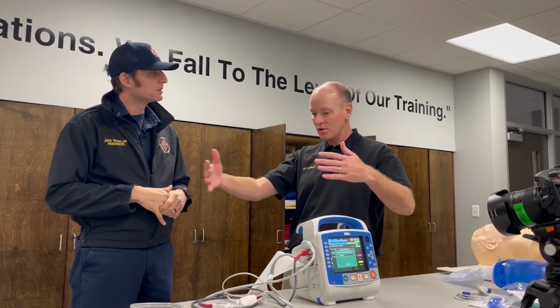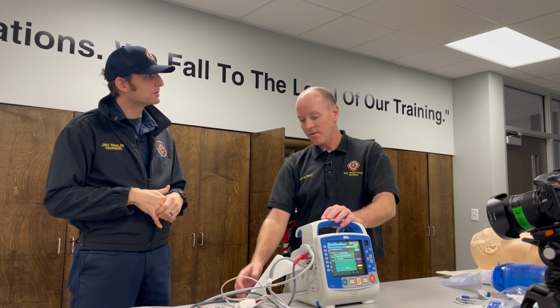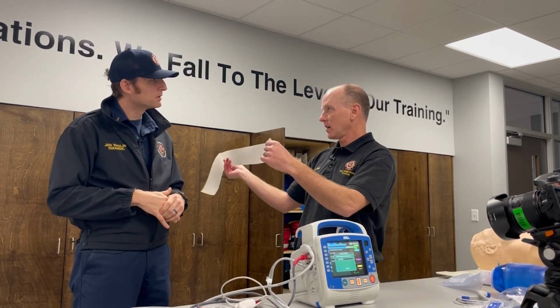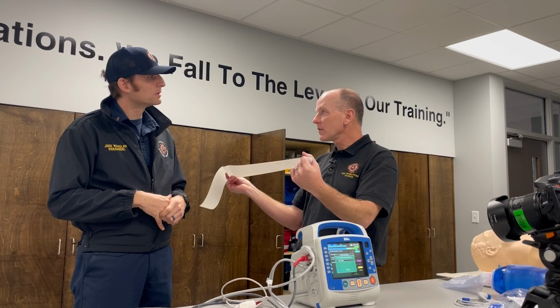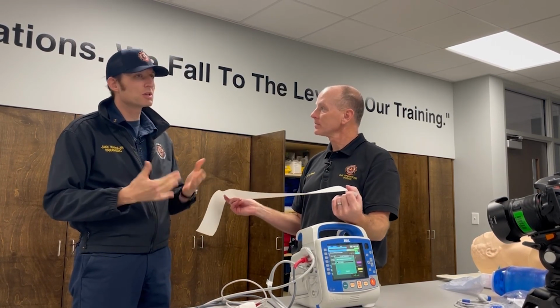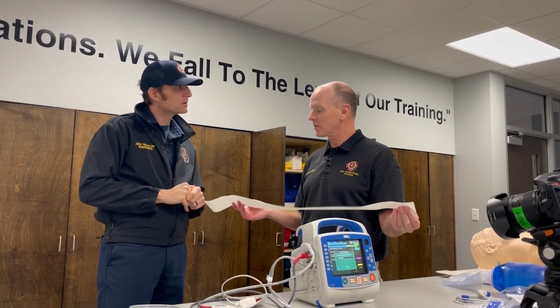This is Cobb Fire Engine 6. I'm unable to transmit. I'm on scene of a 35-year-old male who's having, and you guys will take this and you'll read, I am having a high lateral MI in leads 1, V5, 6, whatever. And you read out your patient's findings there and they will start. That's pretty simple. Simple as that. And then you tell them, I will eventually get you a transmitted 12 lead.